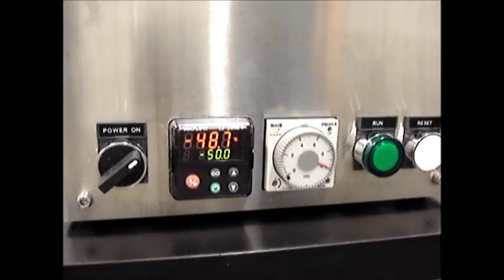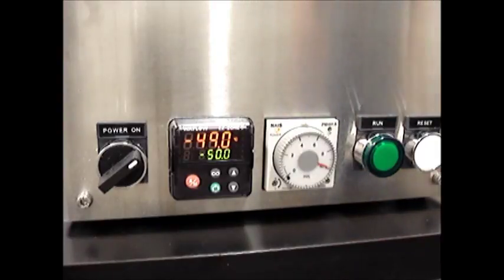We'll go ahead and watch the freezer reach that point and the alarm should sound to let us know that our vapor has reached a temperature that is consistent with us being able to freeze some semen. We'll watch it hit minus 50 here and then we'll demonstrate the actual process of loading the semen into the machine.